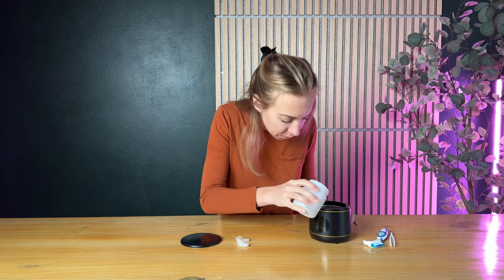So we're going to go ahead and try it out and put it to the test. I just plugged the unit in — it does come with its own plug, and it's actually stored inside the container when you first open it up. So make sure to take the lid off and get the plug out from the inside. Then I'm going to pour some water in and make sure not to pour it over the max fill line.